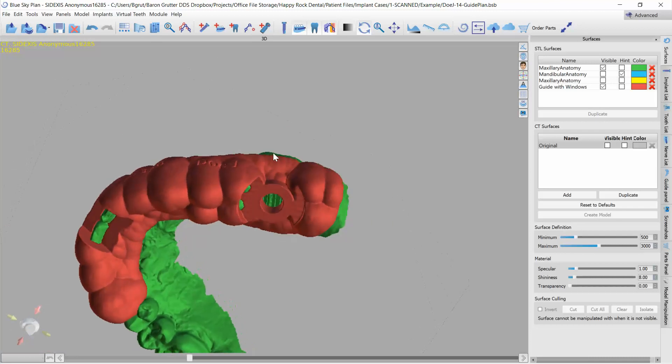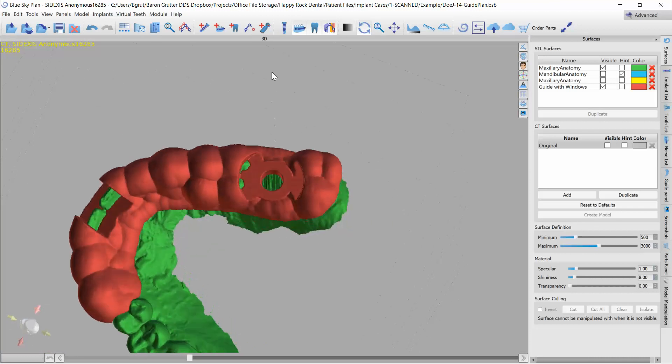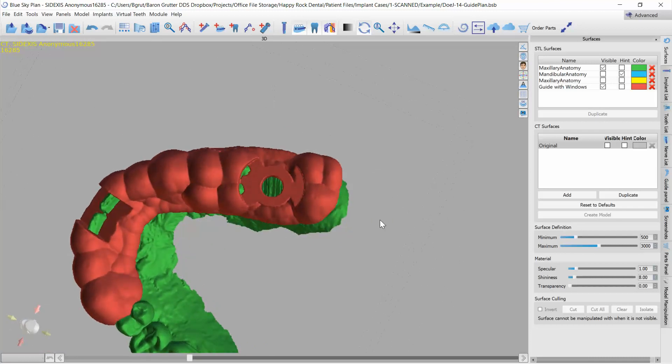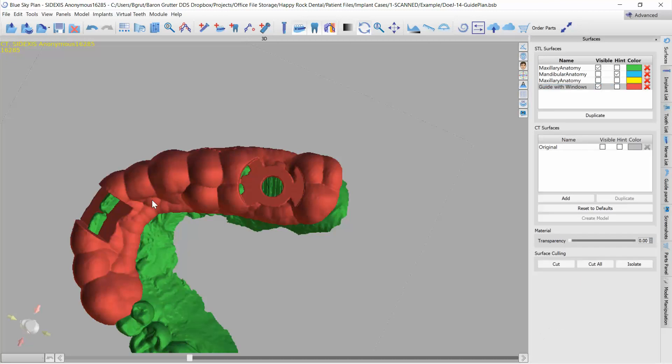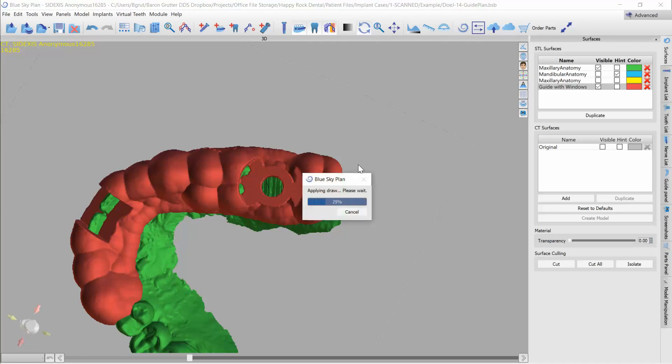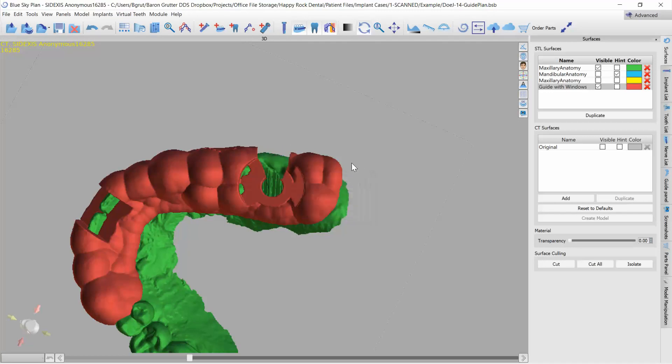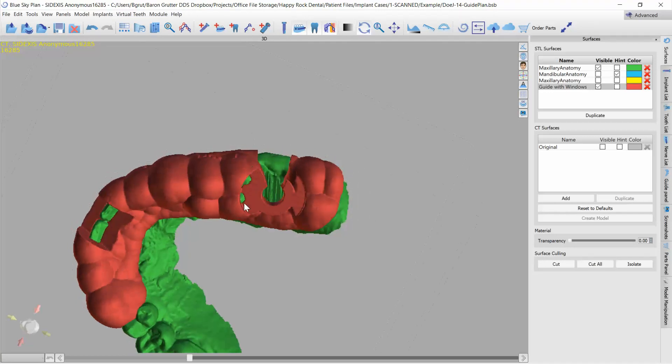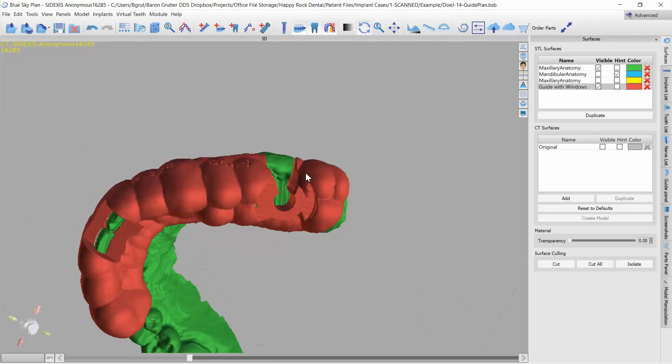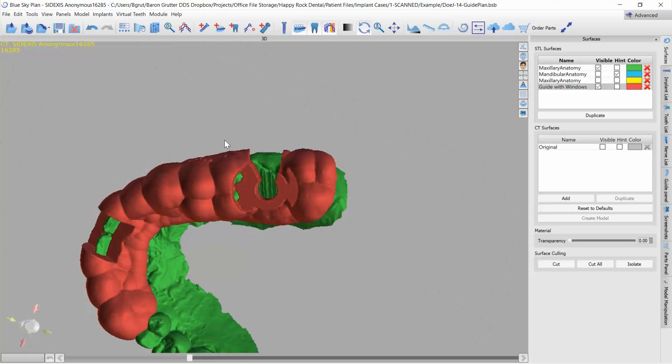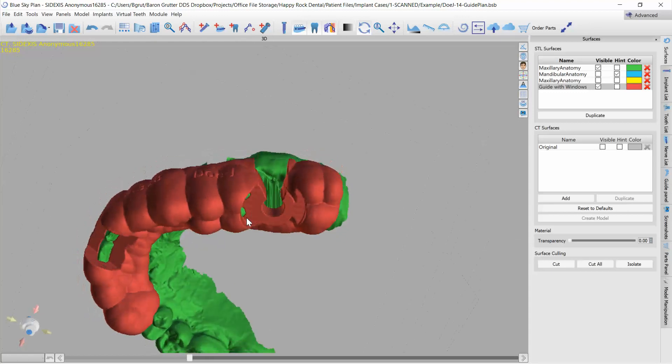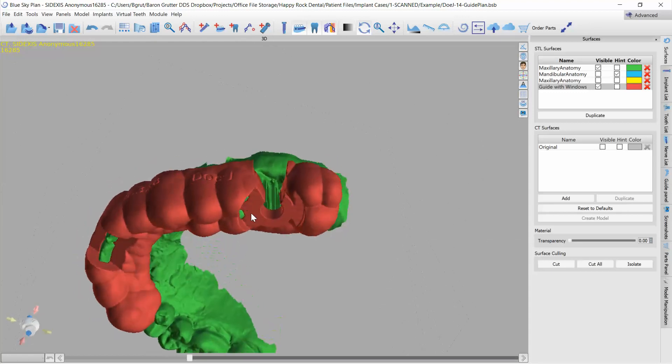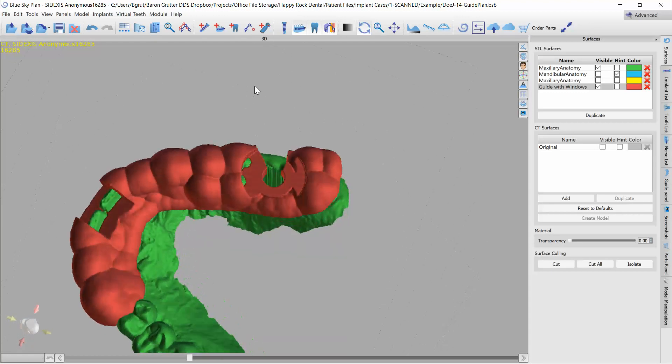You could do things as simple as taking your guide, clicking on it, and then using the cut tool to cut this area out. Now I'm literally recording this video from while sitting on the stairs, long story, but this is one way to do it that's certainly an easy way to do it, very quick and efficient.